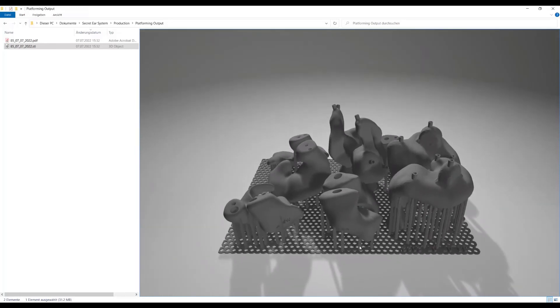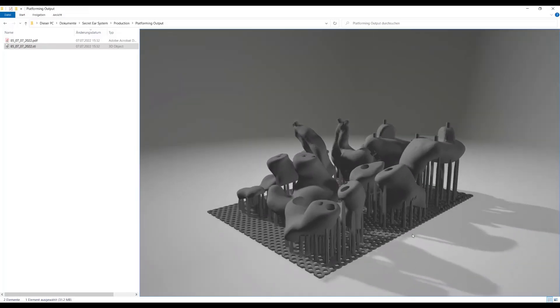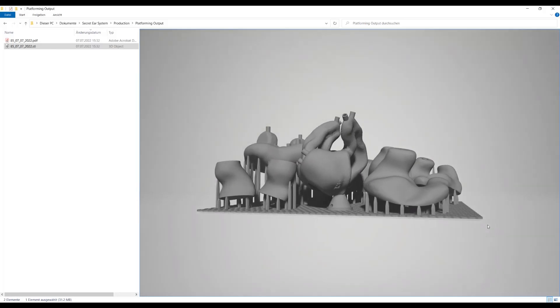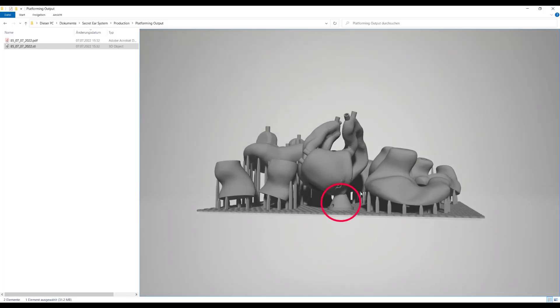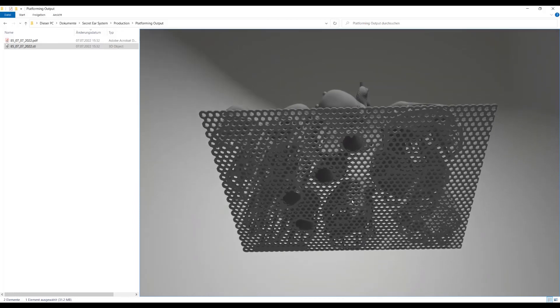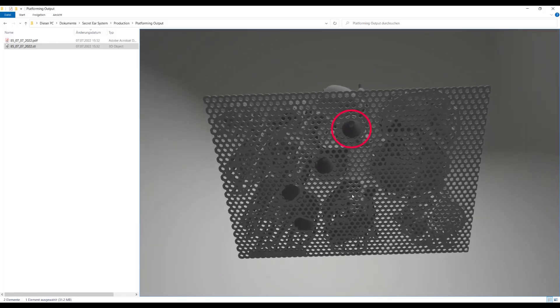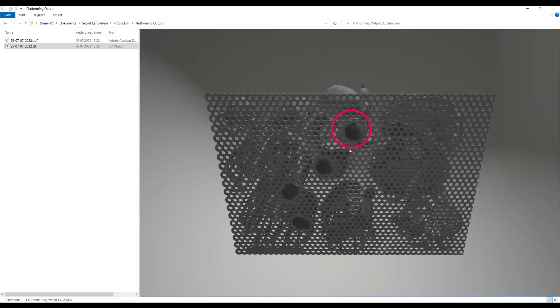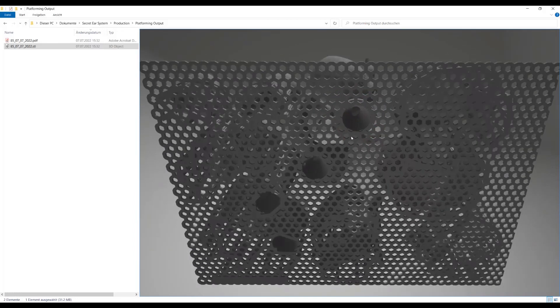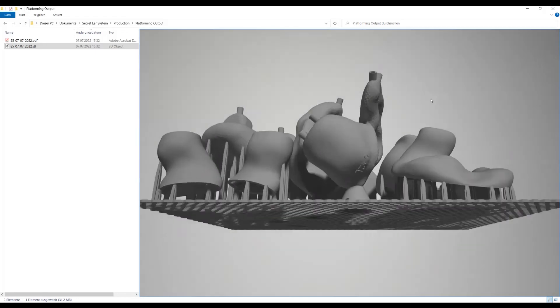There is a little secret to the injection mold support cones. They double as funnels for the introduction of soft silicone. This saves time and effort when detaching and post-processing the printed models.